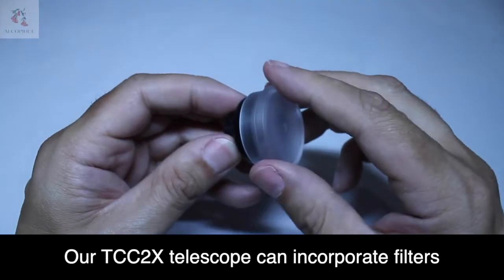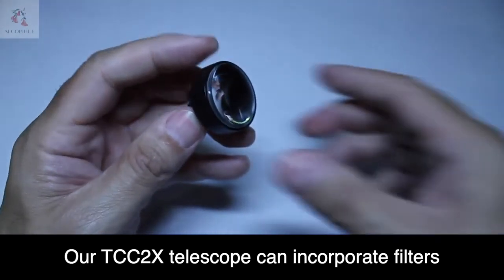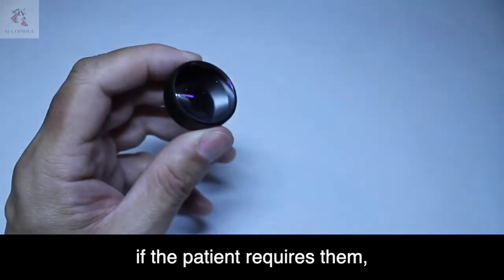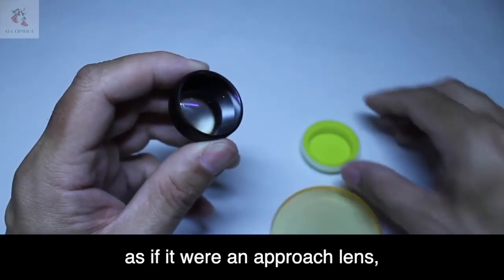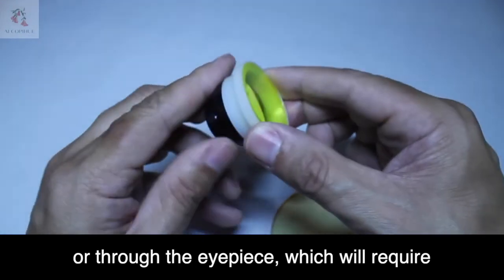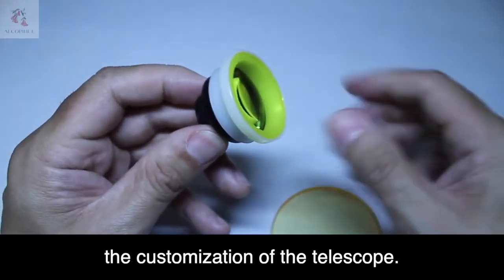Our TCC-2X Telescope can incorporate filters if the patient requires them, either by applying them to the objective as if it were an approach lens, or through the eyepiece which will require the customization of the telescope.